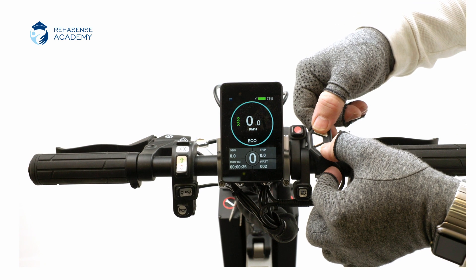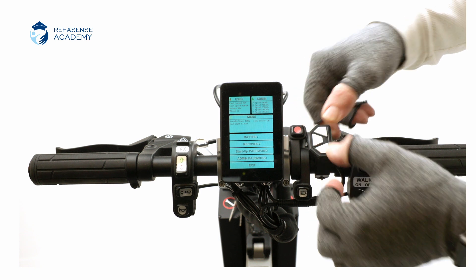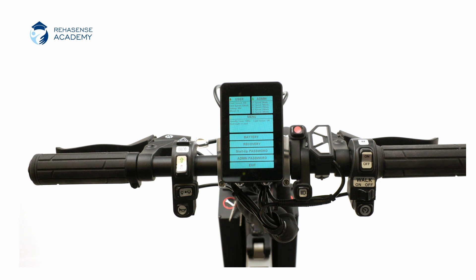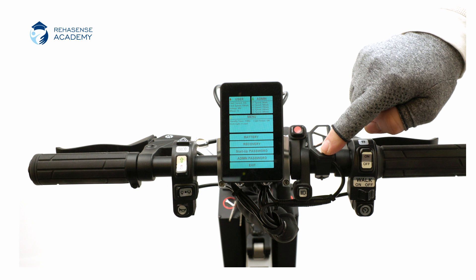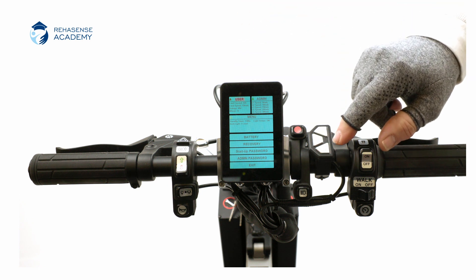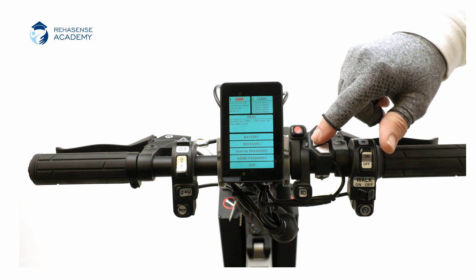To enter the different menus, press the plus and minus buttons at the same time. Keep them pressed until you enter the menu system. Use the plus and minus keys to scroll through the menus. The power button works as a confirmation of your choice when changing a parameter.